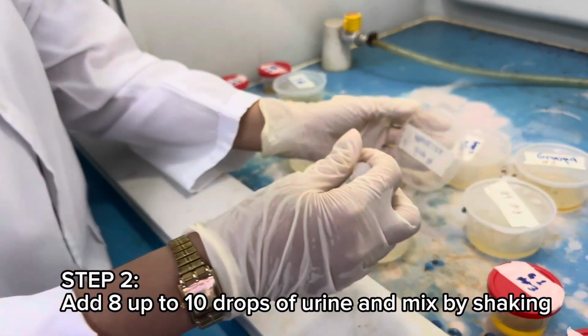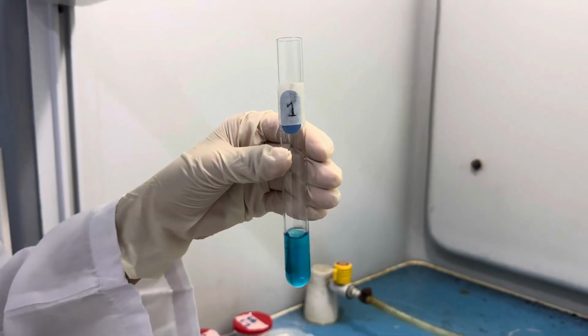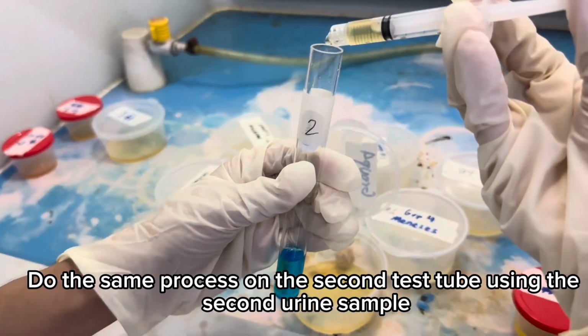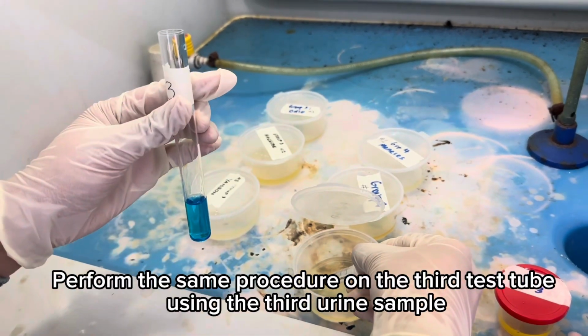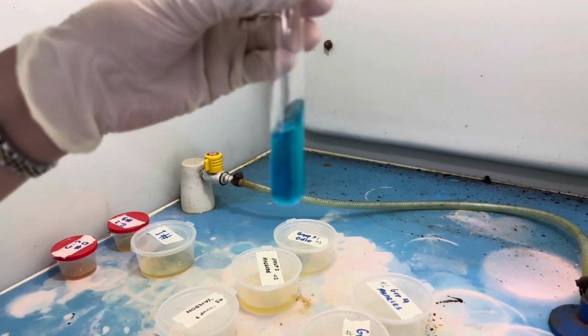Step 2. Add 8 up to 10 drops of urine and mix by shaking. Do the same process on the second test tube using the second urine sample. Perform the same procedure on the third test tube using the third urine sample.